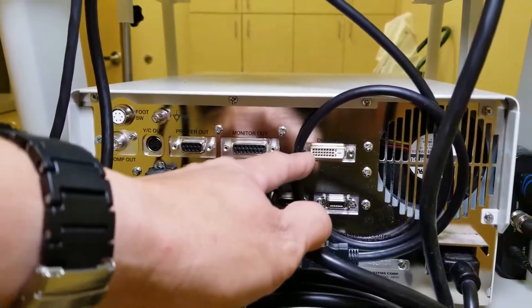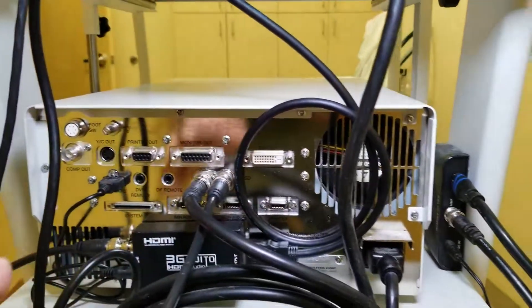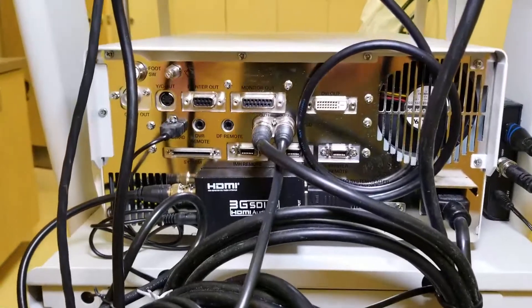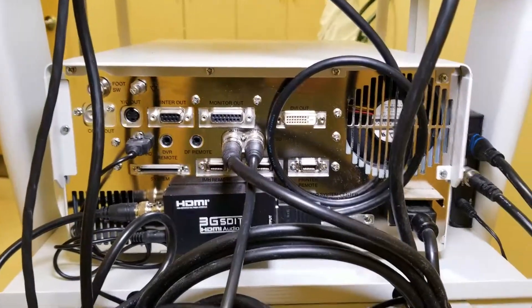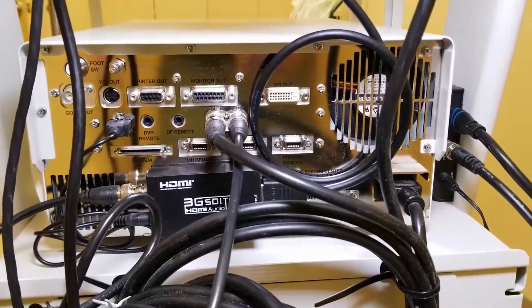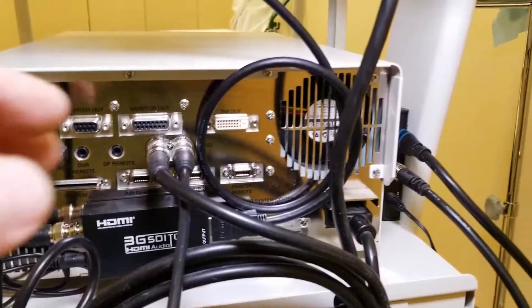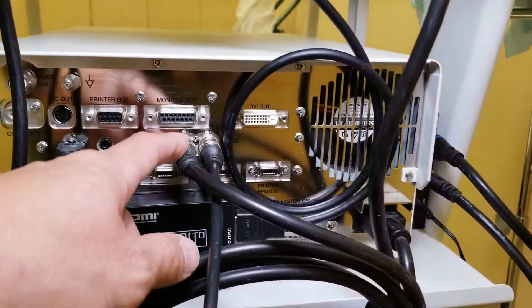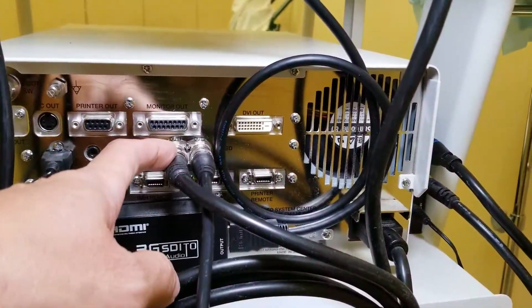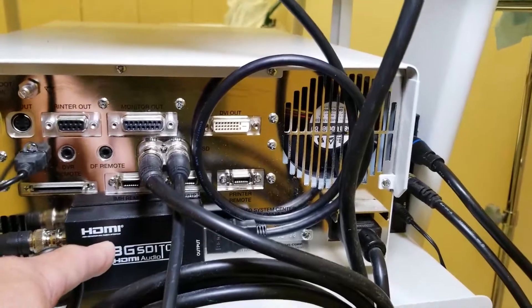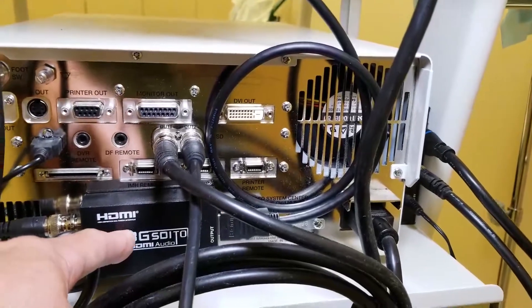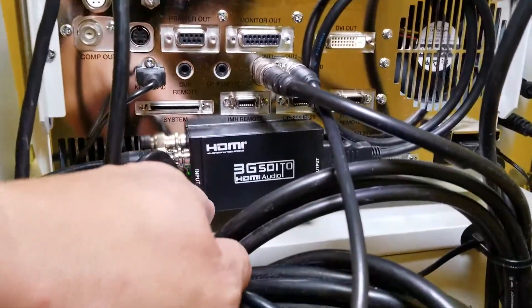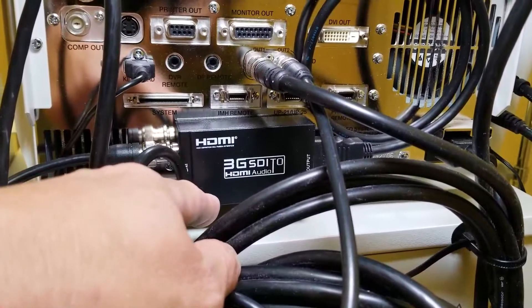DVI is not quite as unpopular. However, HDMI is the easiest way to get monitors, and I have converted the signal from SDI to HDMI using a very simple converter like this.